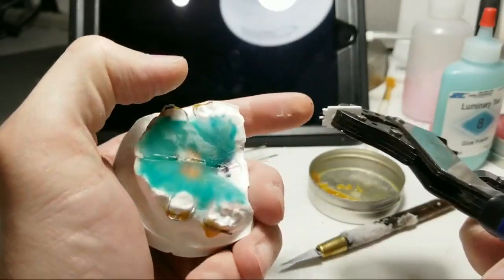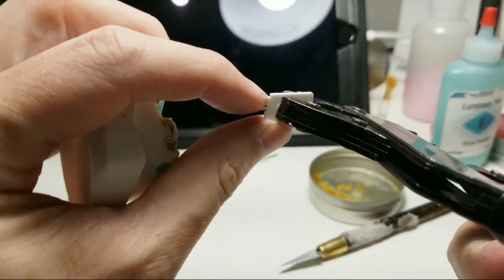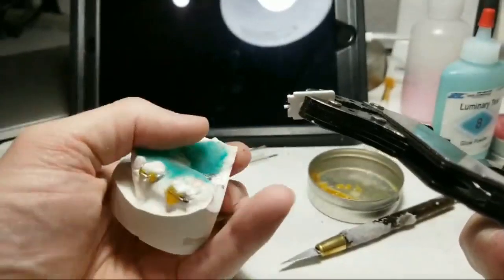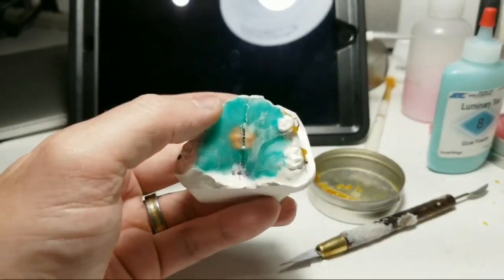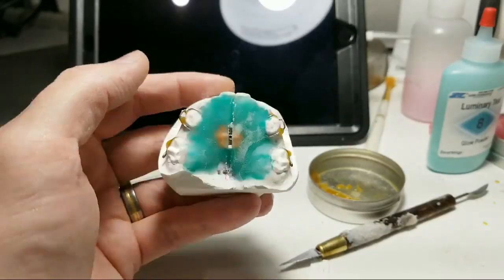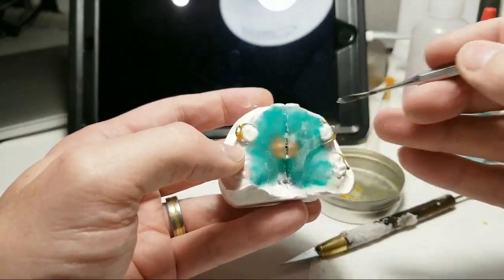As you saw, these are actually two separate pieces. There's an interlocking right here — it interlocks with the lower tab part that's embedded in the stone. I'm going to let this cure a little bit more. Pay attention to this feed — I'll post a picture of the finished product. But what you would actually do is then take the key once you take this off.